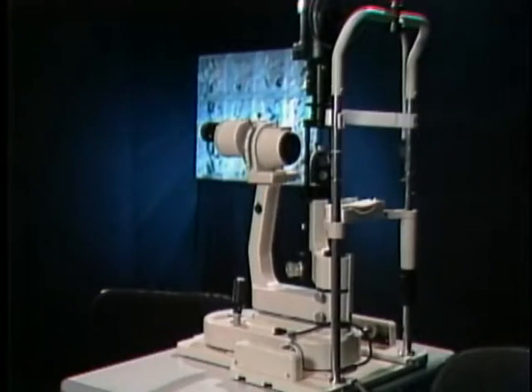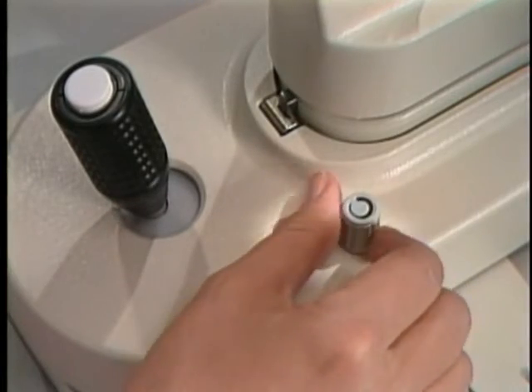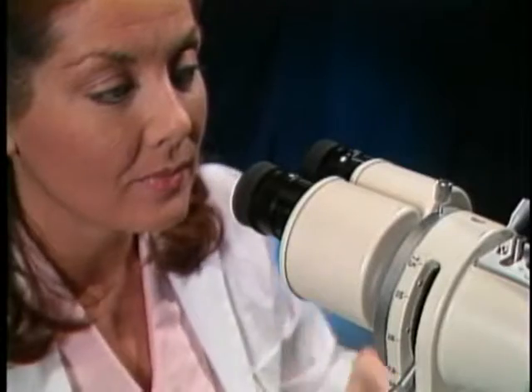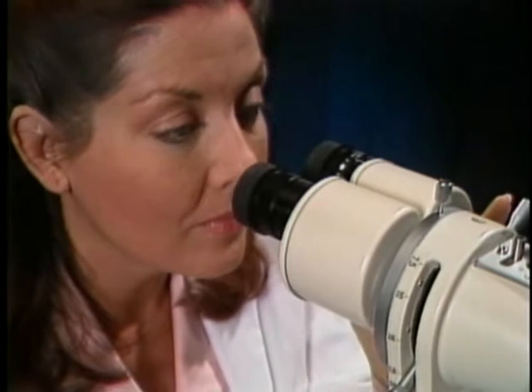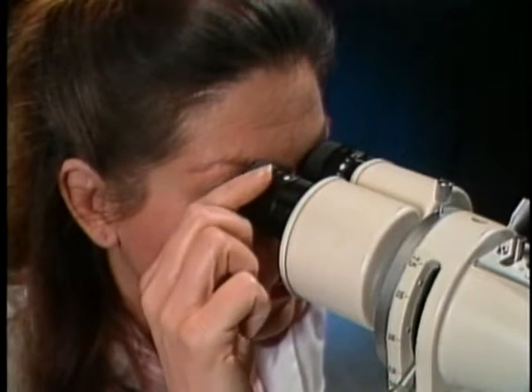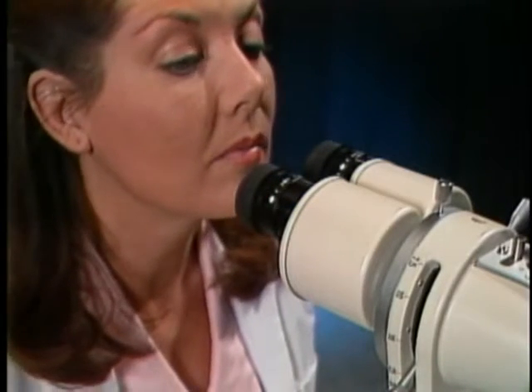In preparation for patient examination, begin by setting the rheostat to its lowest level before turning on the power. Preset the oculars by turning the eyepieces fully counter-clockwise. While viewing an illuminated field, slowly turn the eyepiece with the reticle clockwise until it reaches sharp focus. Then view through the other eyepiece and turn it clockwise to focus the field. Note these settings for future use.